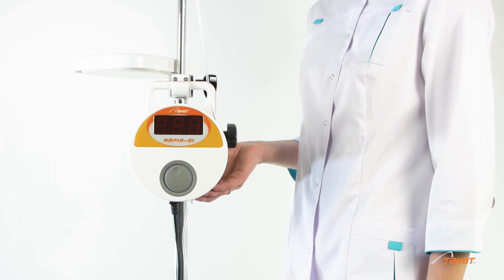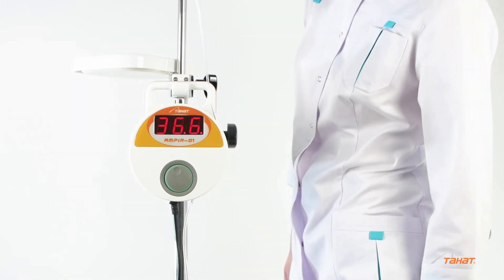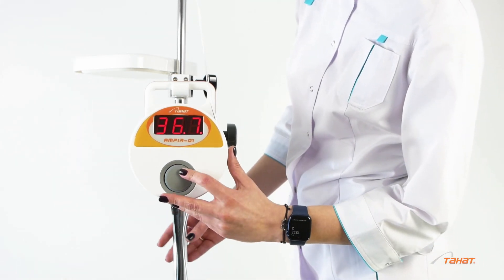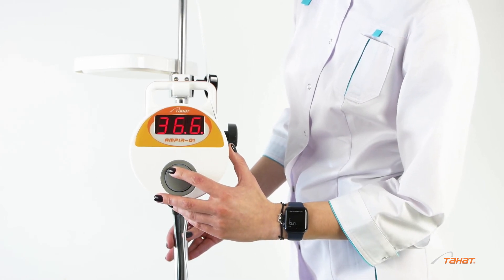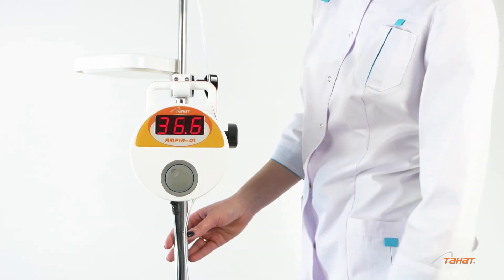With modification 01A to increase the temperature rotate the regulator clockwise, to decrease, counterclockwise. To start or stop the warming process, press the center of the regulator.